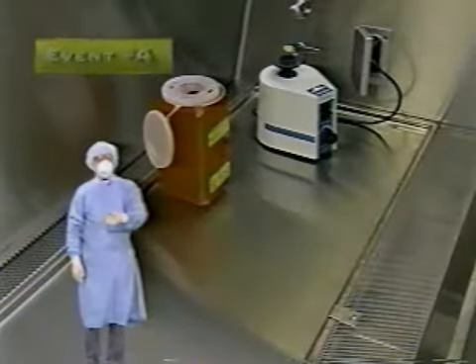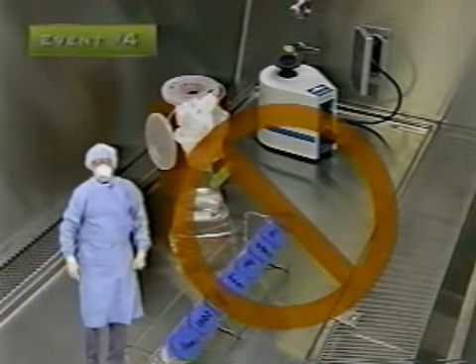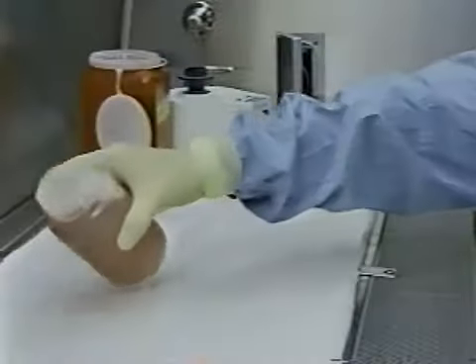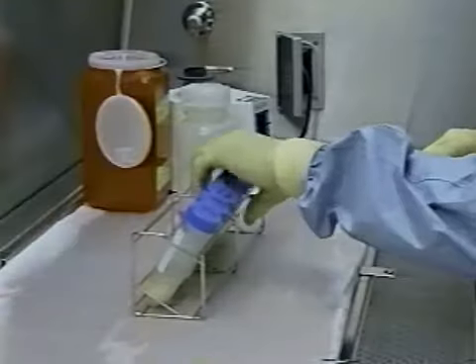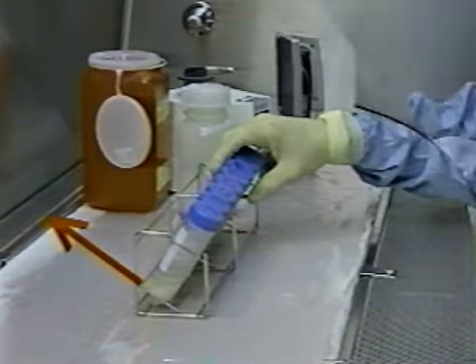Do you remember this scene from the observation exercise? Something's wrong here. Where's that disinfectant-soaked towel? Drops or spills falling on hard surfaces can splatter long distances, creating aerosols which can contaminate work surfaces, specimens, or you. Always work over absorbent toweling soaked with disinfectant. Should liquid drop onto the work surface, the wet towel will absorb the spill, reducing the production of aerosol by as much as 90%. Make certain that the toweling does not block any of the BSC's intake or exhaust ports.